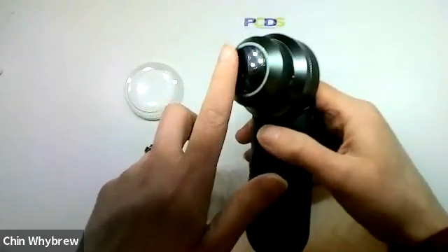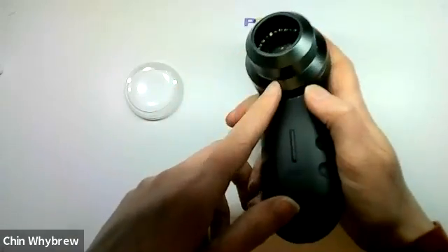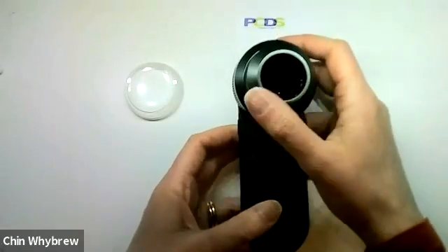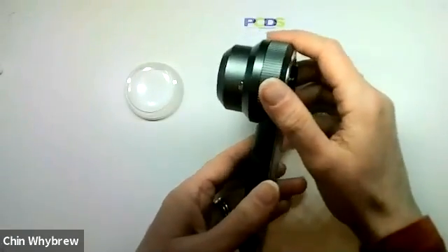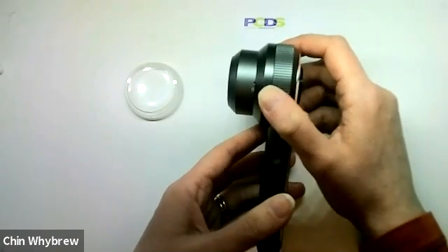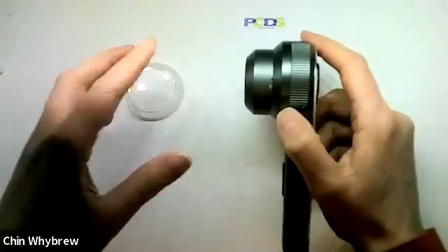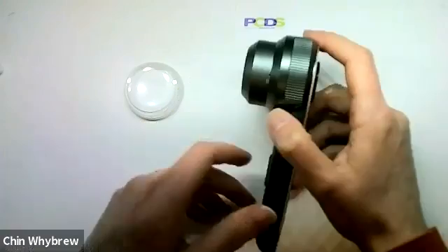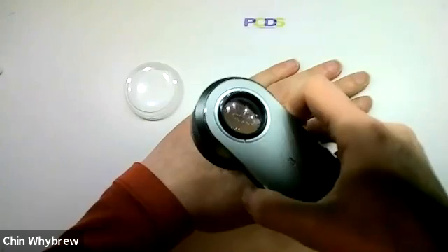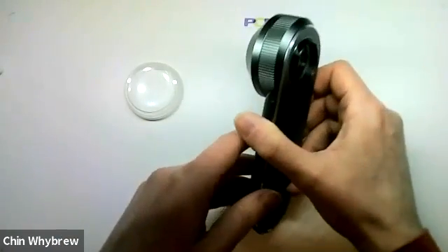This is a completely enclosed system, so you don't need to take the end plate off to clean on the inside of it — and in fact on this one the end plate doesn't come off. That may be a slight disadvantage if you want to view a lesion with vessels on the surface that you don't want to compress, but you can just retract the end plate and hold it above the skin at a certain distance to get the focus about right.